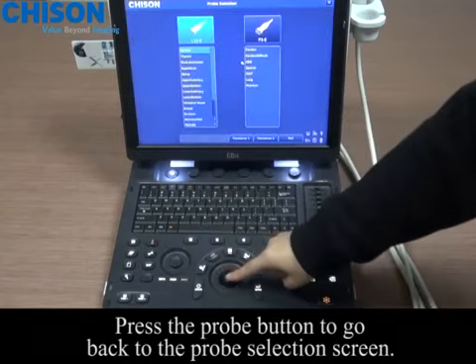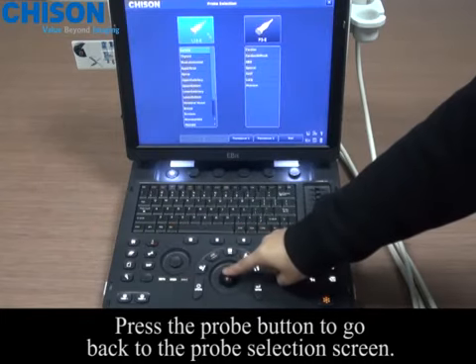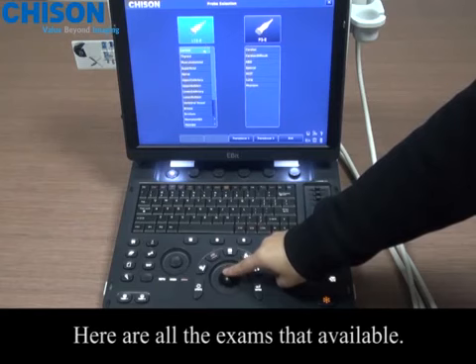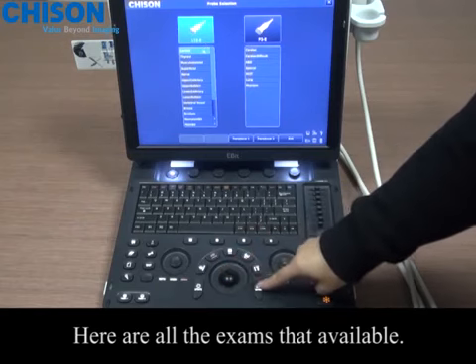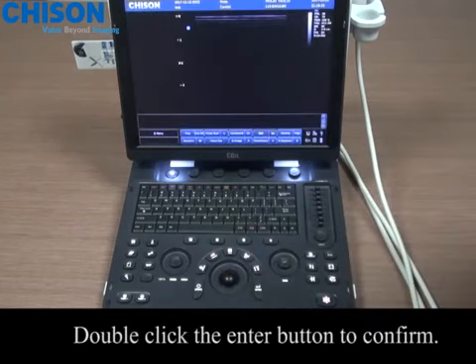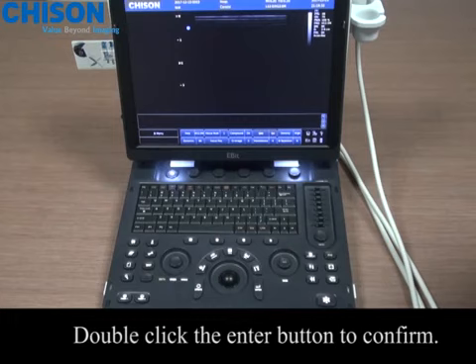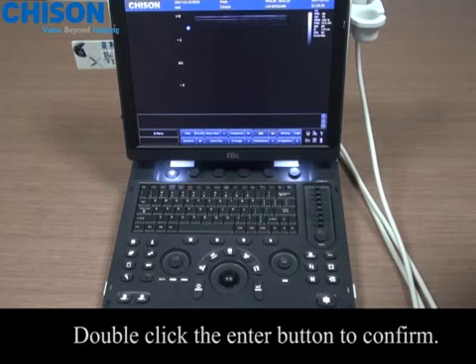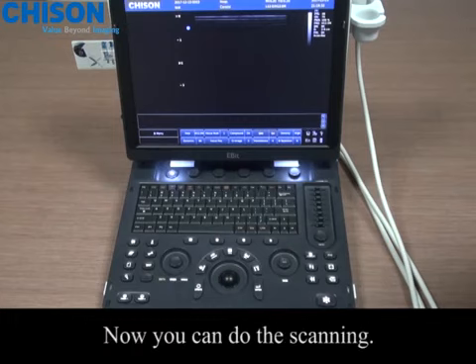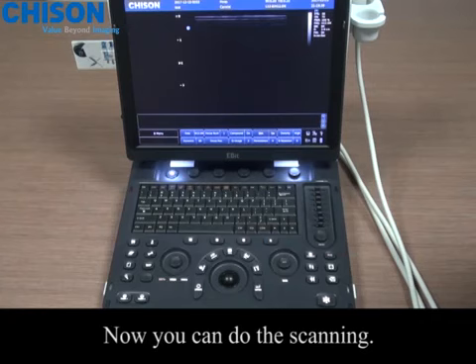Press the probe button to go back to the probe selection screen. Here are all the exams that are available. Double click the enter button to confirm.